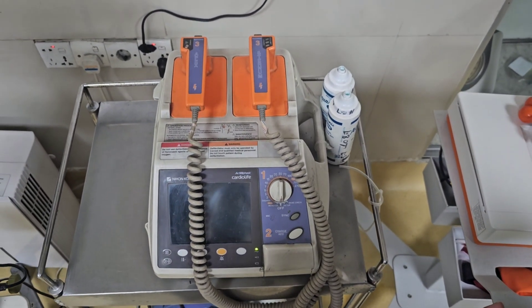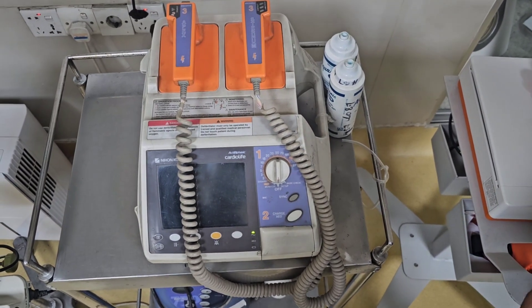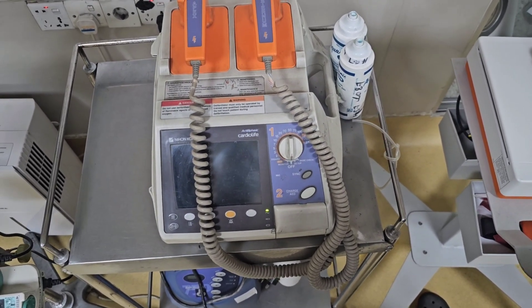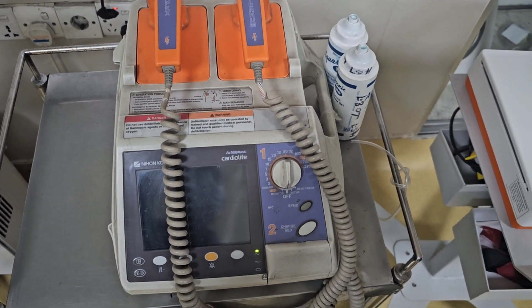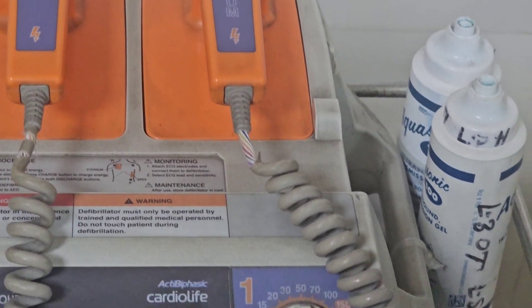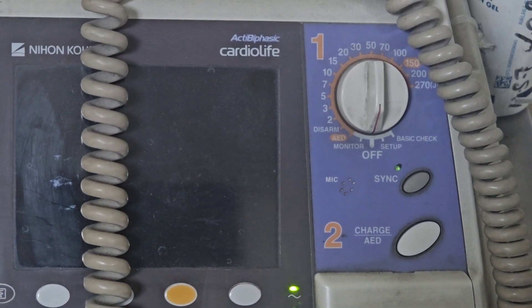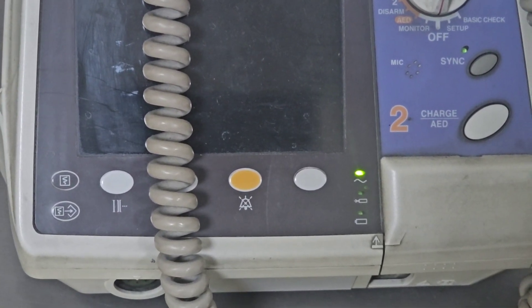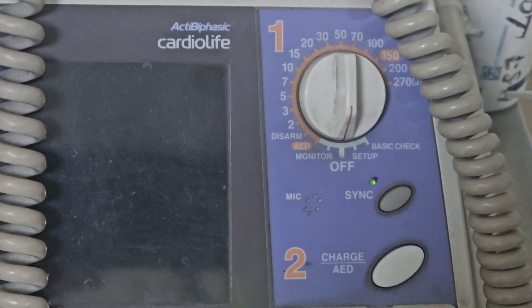This machine can be used in different setups and is a very useful piece of equipment, but in our country — a low-resource setting — it is not available in all hospitals. It is available in some corporate hospitals and some government hospitals. It requires low maintenance, but maintenance is very poor in our country, so most of the defibrillators are not actively functioning in different hospitals. We hope this video helps you use it easily in your institution and improves your efficacy in performing defibrillation or cardioversion. Thank you everyone.